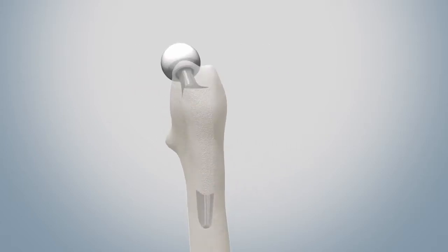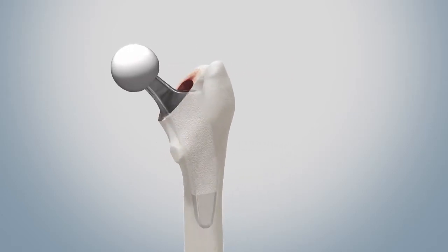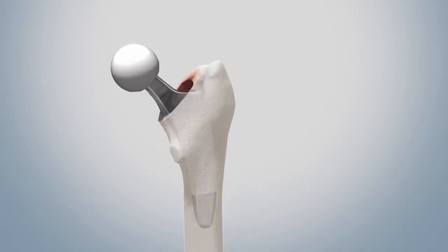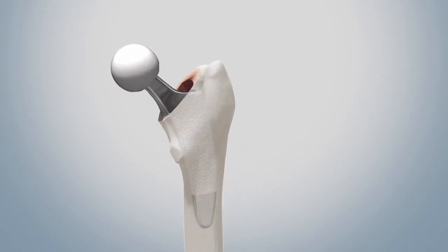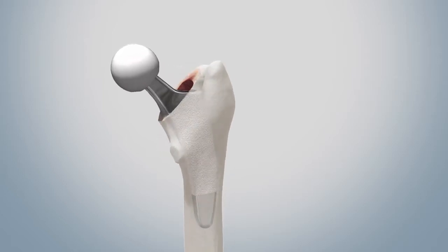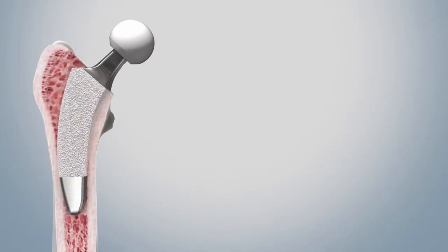Here it should be noted, however, that in the first few weeks stability is ensured via the primary anchorage and stable secondary anchoring is not completed until about week 12. Disturbances and overloading, especially in the first post-operative period, should be avoided as much as possible in order not to jeopardize the regular ingrowth of the implants.